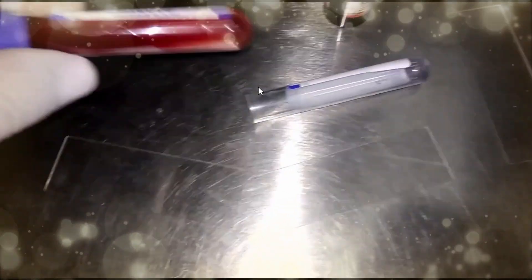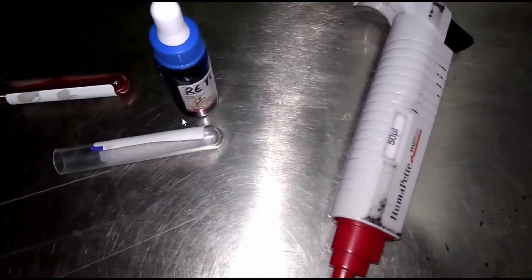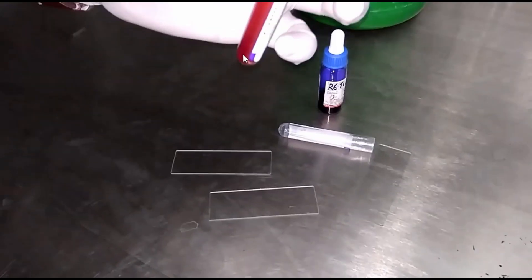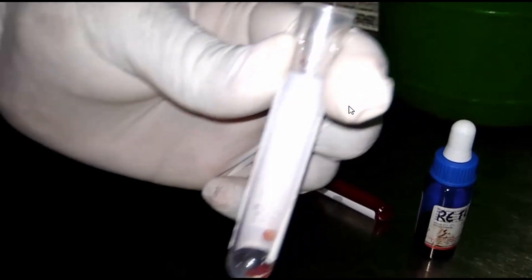Let's know observation of microfilaria, live and dead, under microscope. Requirements: here we have new methylene blue, which is a vital stain. This simple test requires EDTA blood, slides, a test tube, a micro pipette, and a microscope.